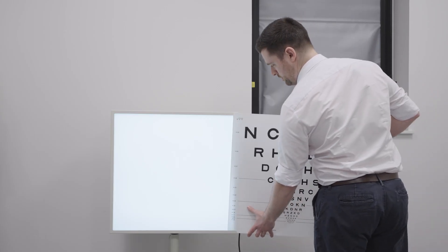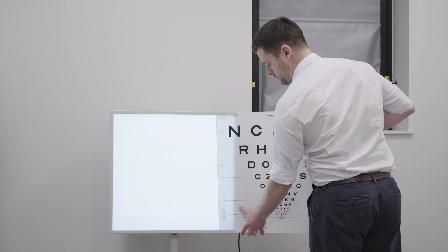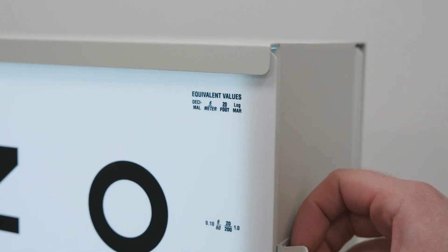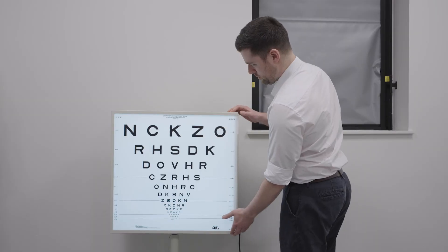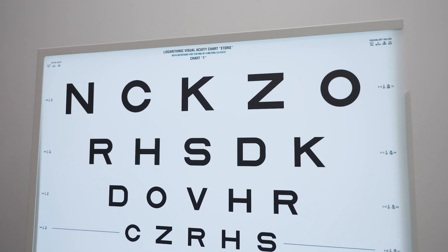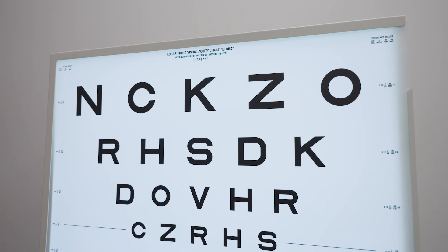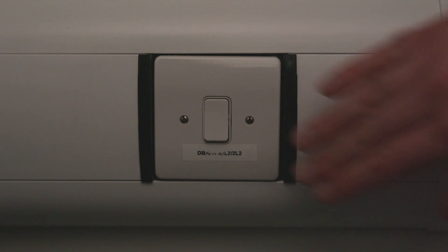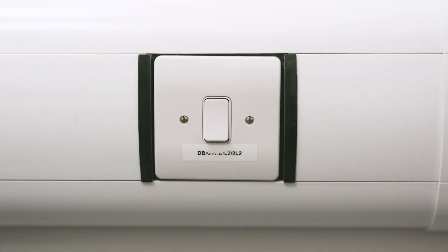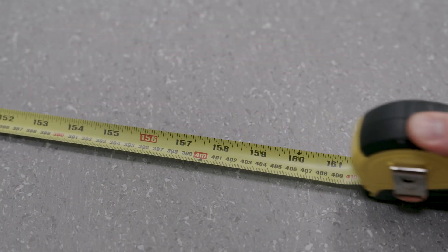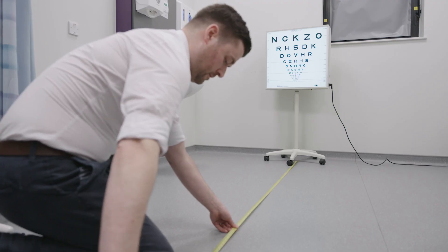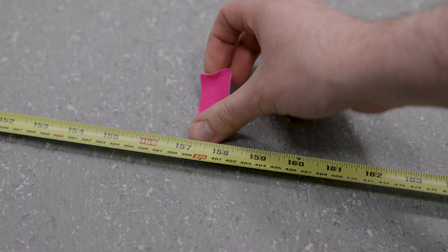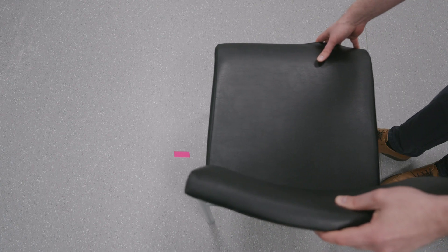Both the charts and cabinet backboard should be in good condition and free from marks or areas of discolouration. The testing lane used should be consistent where possible and should be evenly illuminated. Rooms with dimmer-controlled lighting should be set to the brightest setting. The distance from the chart to the patient should be accurately measured with a tape measure, from the centre of the chart to the centre of the patient's chair.